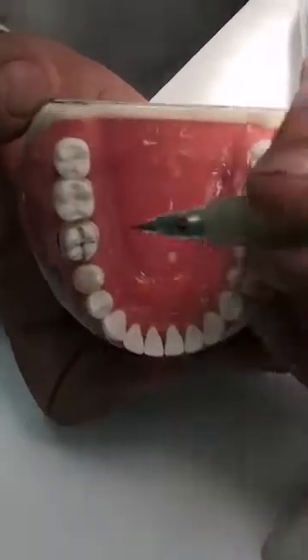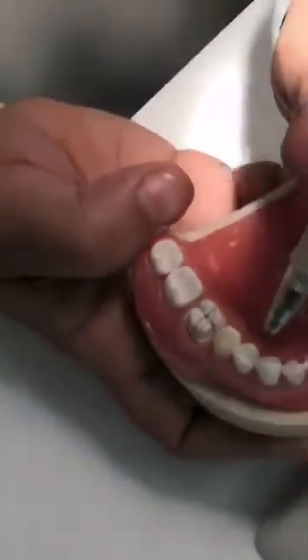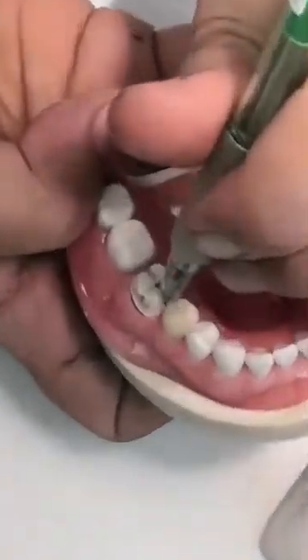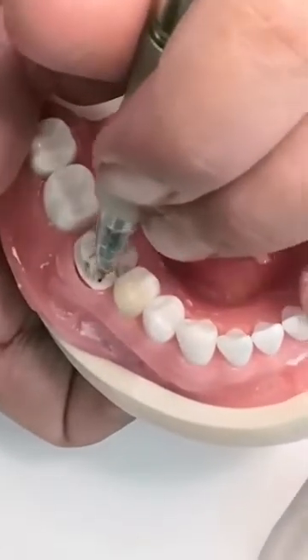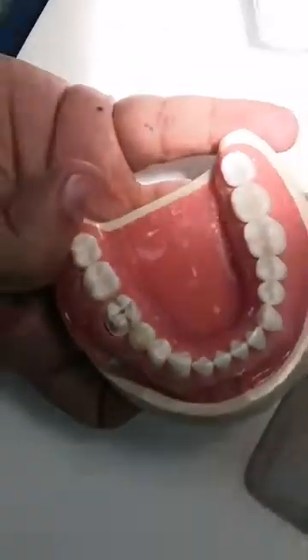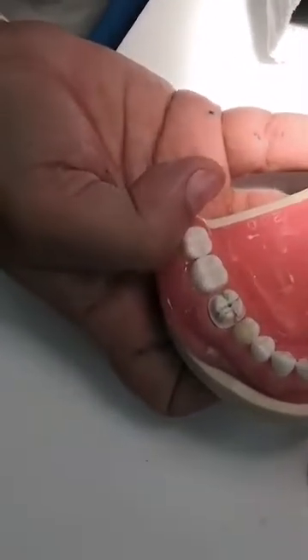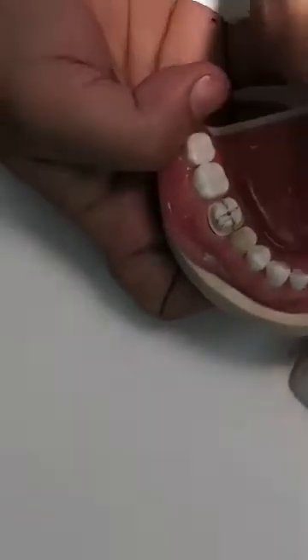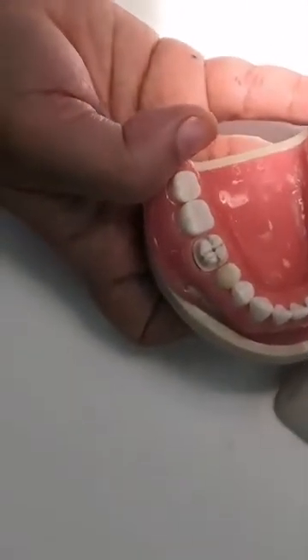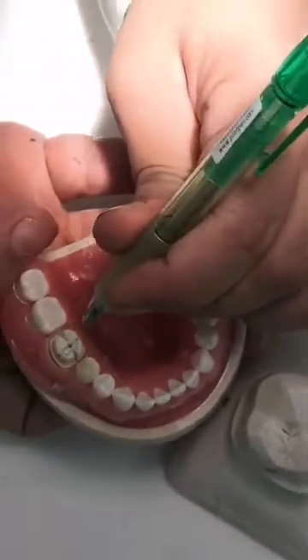You have done it excellently buccally — you followed the morphology — but lingually you have not, so I might suffer from over-bulging of the crown later on. I could see the demarcation between the shoulder and the chamfer. It's like a ledge between a deep shoulder and the shallow chamfer. Many students sometimes tell me they've used the chamfer bur, but it's not the bur that creates the chamfer — it's the depth. Even if you use a chamfer bur and prepare more, it will become a step or a shoulder. It is the depth in the axial wall that matters. Here you have created a good chamfer.